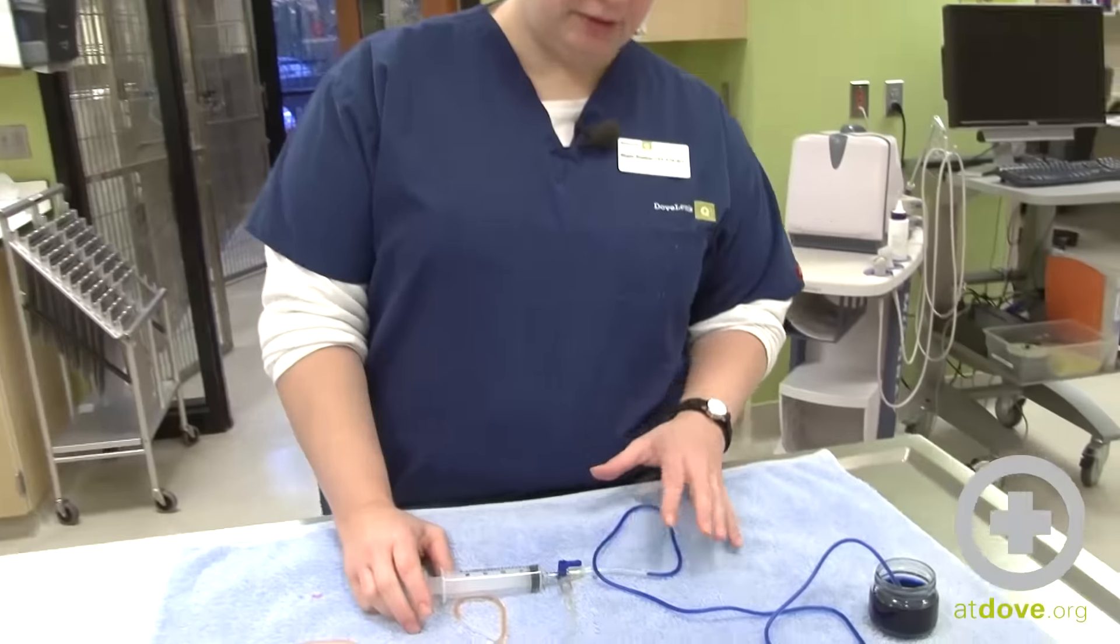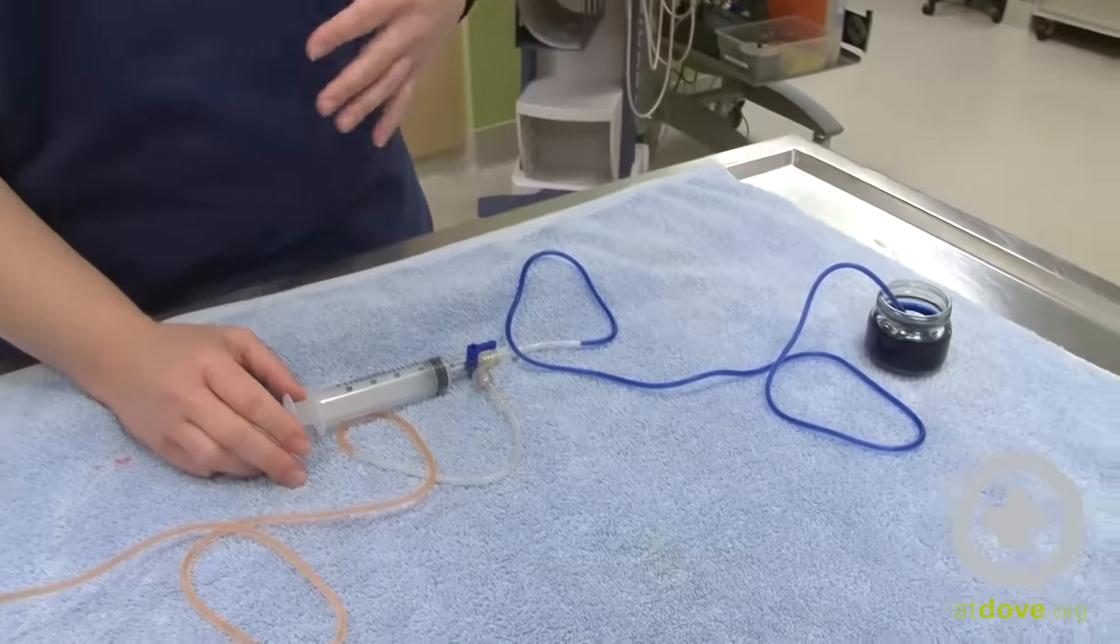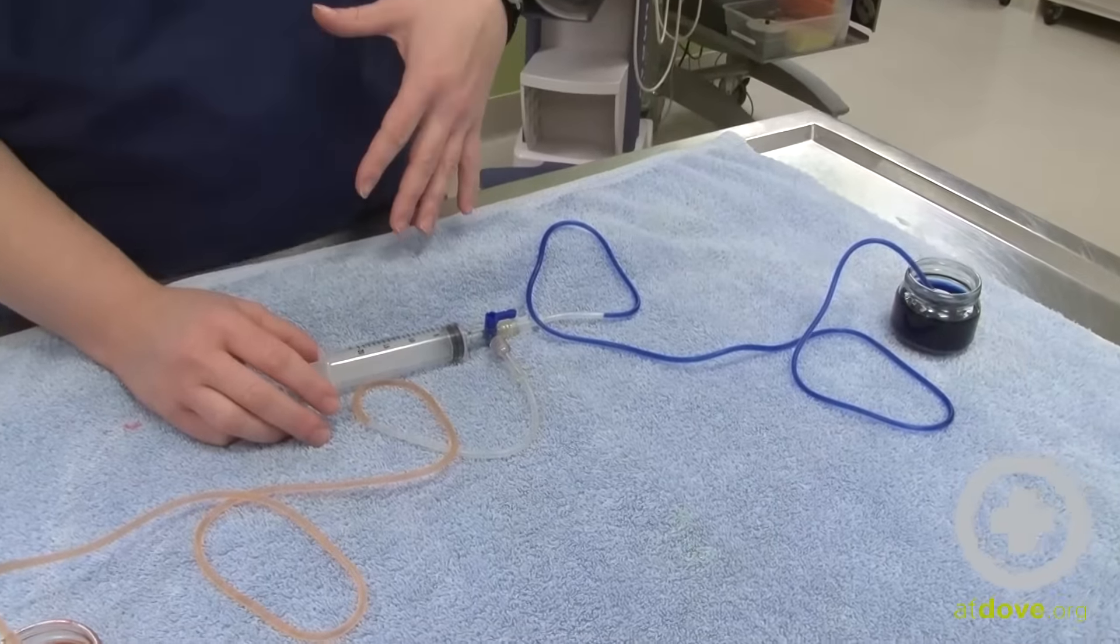A three-way stopcock is a tool that's going to allow you to draw fluid or air from a cavity using a closed collection system.